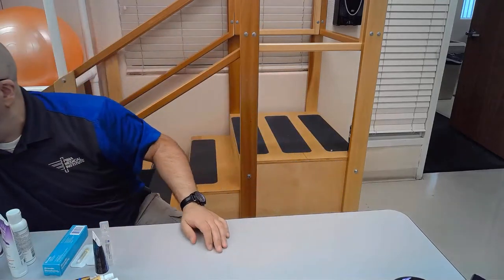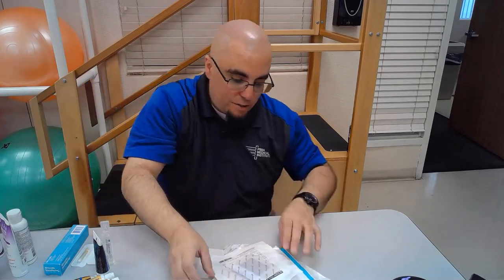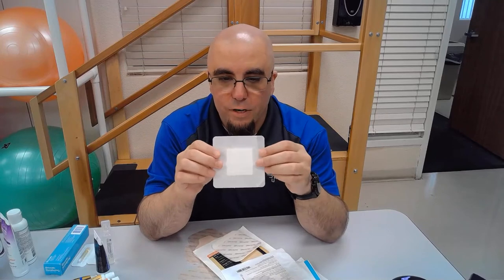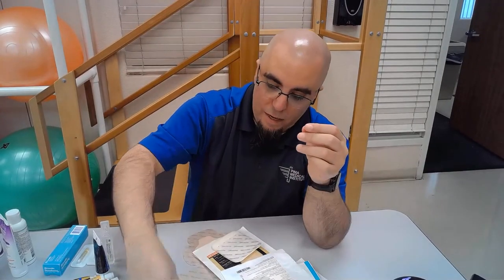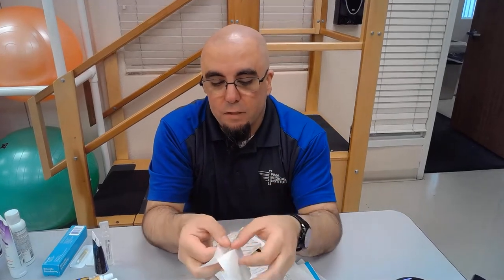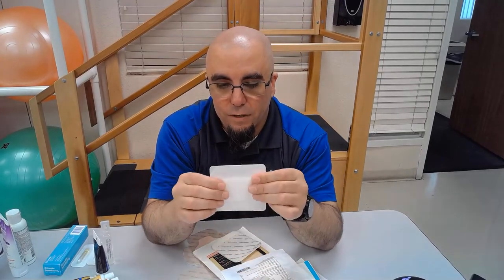Moving to secondary dressings, the most common thing you'll encounter on the floor is standard border gauze. When we think of secondary dressings, think of a large band-aid — it has a gauze pad attached along with adhesive binding so it can stick to the peri-wound area.